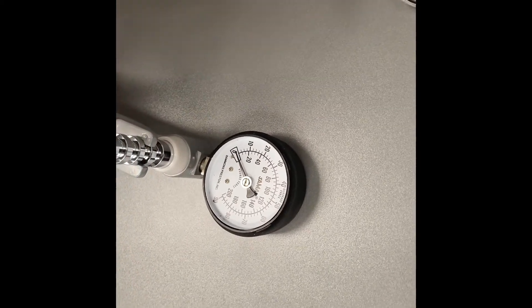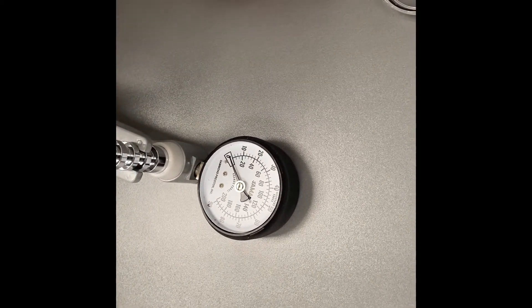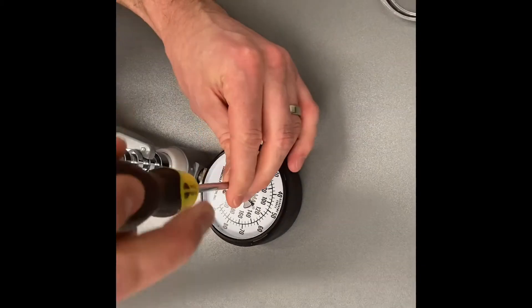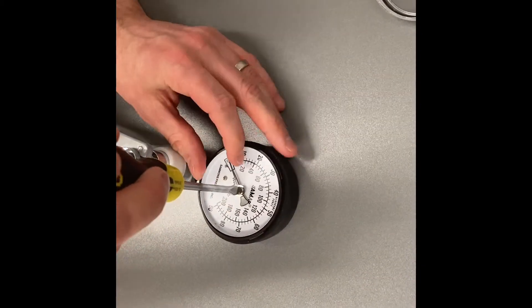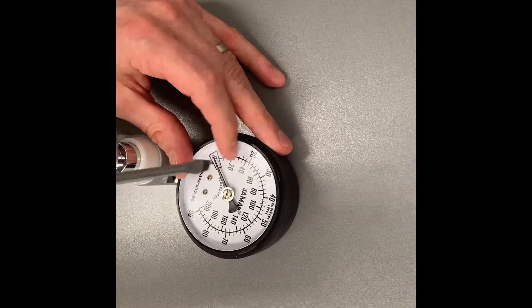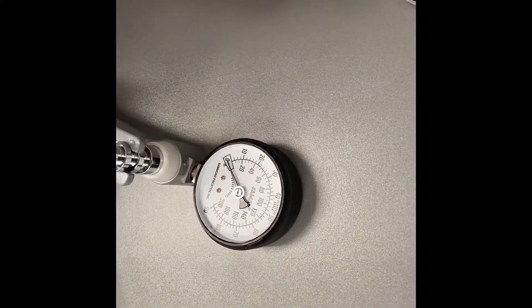And if not, do the same thing again, just simply adjusting slightly until you're happy that the dynamometer has been calibrated correctly.